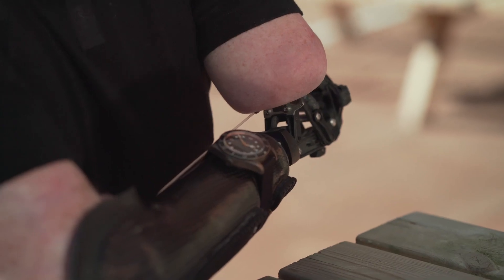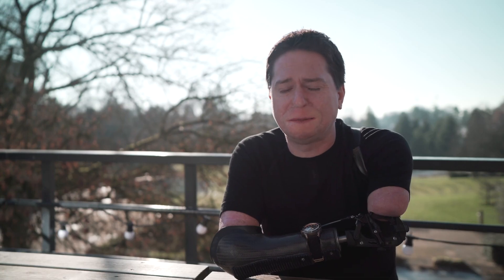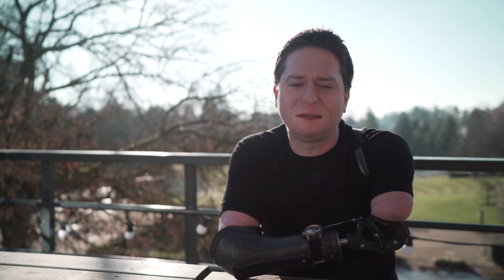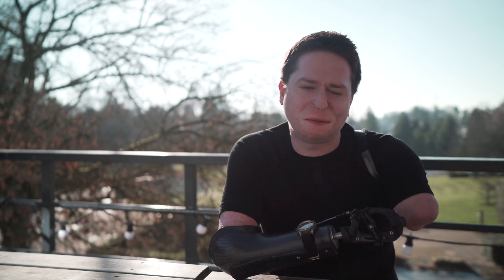My name is Alex Lewis and I became a quadruple amputee back in 2013 due to a rare case of invasive Group A Strep. When I was first in Roehampton in 2014, getting a socket fit took between four and five weeks to get it right. Obviously for an amputee you want to be wearing the prosthetic and beginning to understand how it's going to help your life and regain your independence. It took a long time — lots of iterations of sanding down the socket internally, lots of different test sockets, and then lots of tweaks to the final socket.